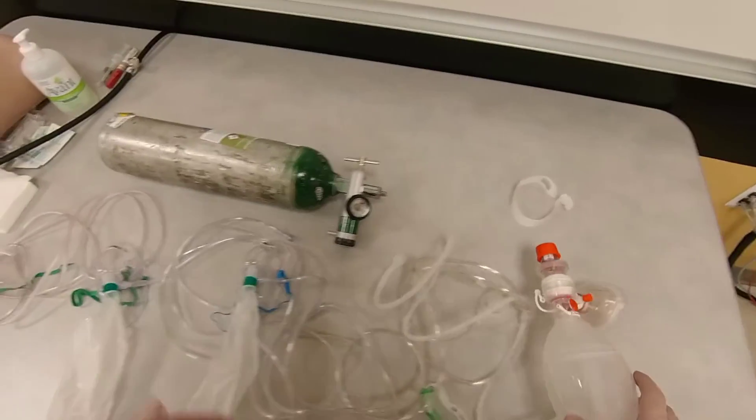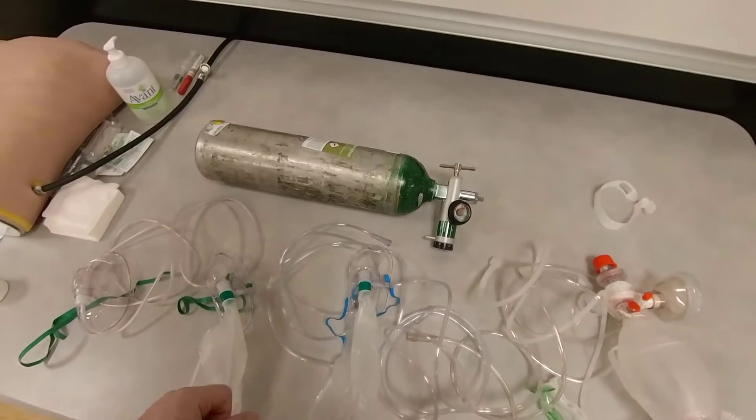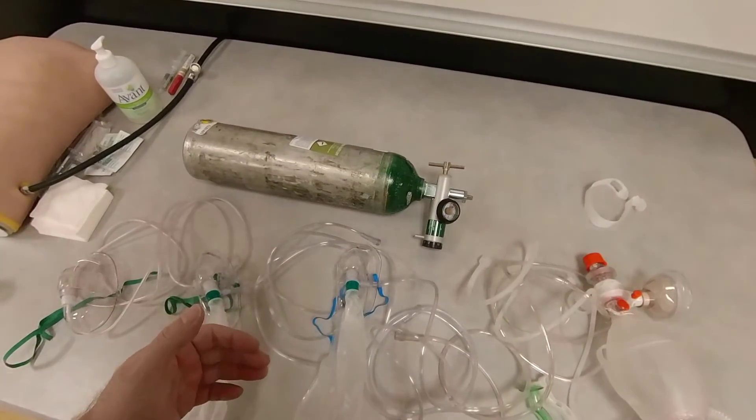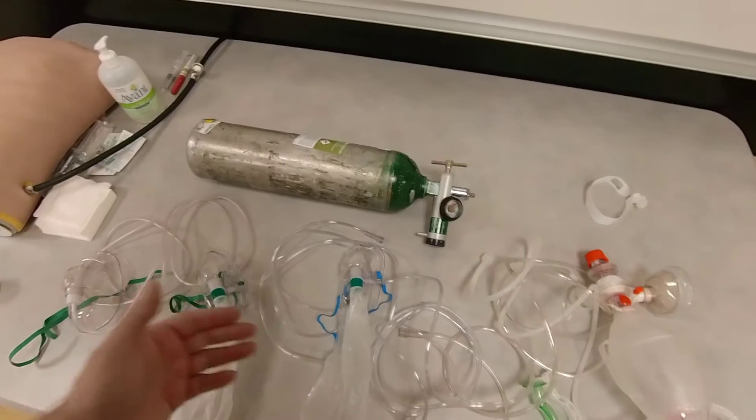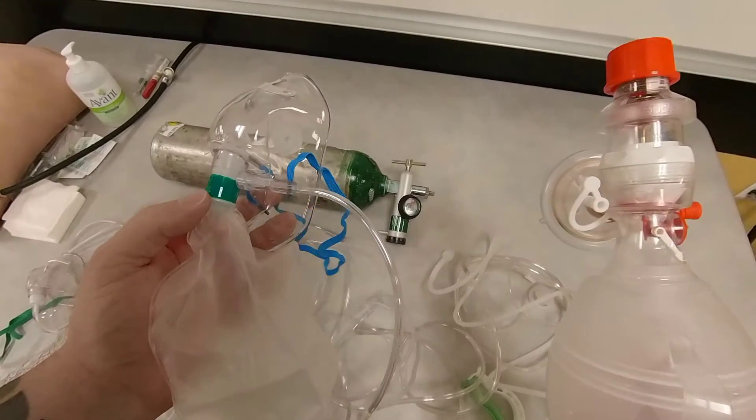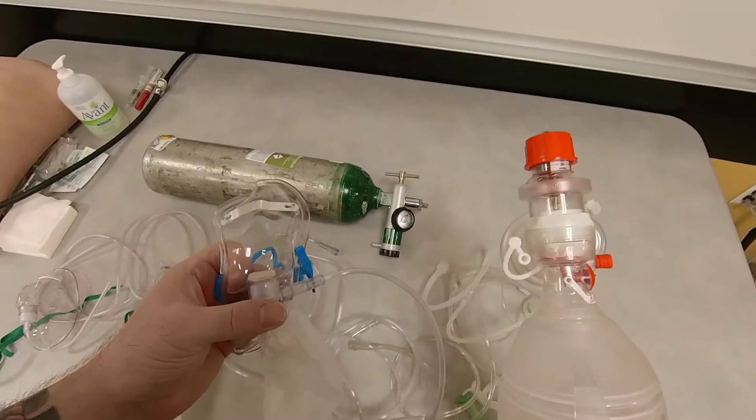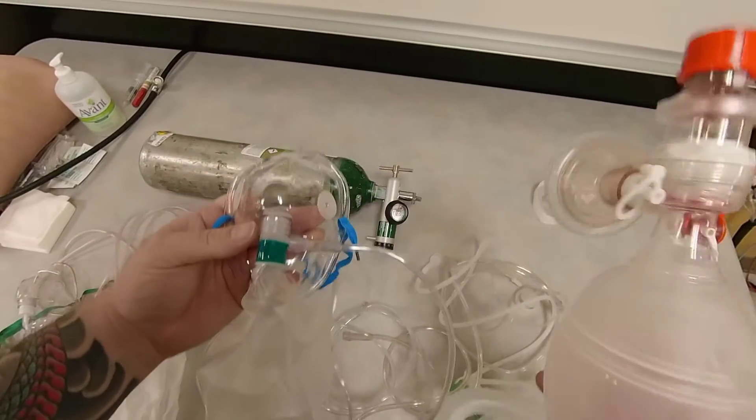Now, in that study that I talked about, Driver used, they connected these masks to a flow that was exceeding 40 liters per minute. And non-rebreather mask was just as good as the BVM at providing almost 100% FiO2 to pre-oxygenate the patient.